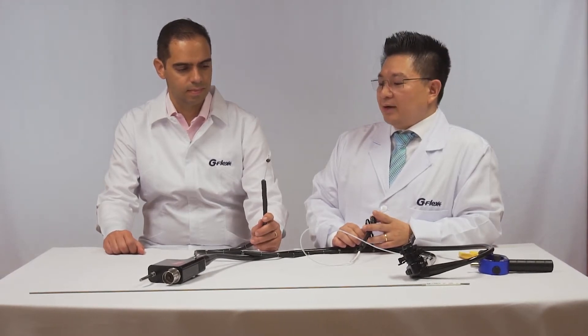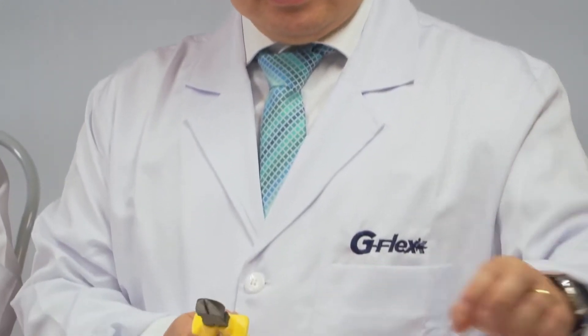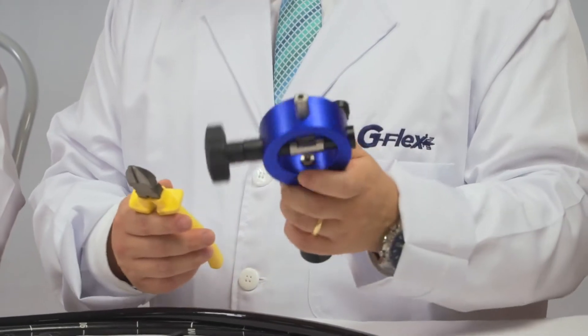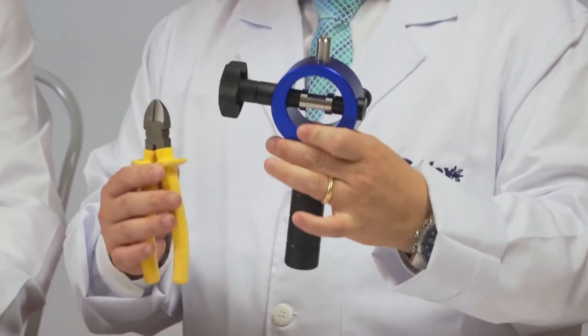Imagine situations, very difficult situation, very embarrassing, that's why we need to have the emergency lithotripsy inventory.